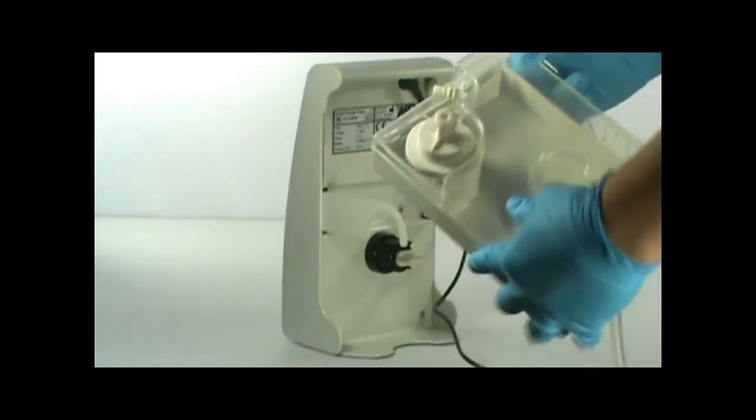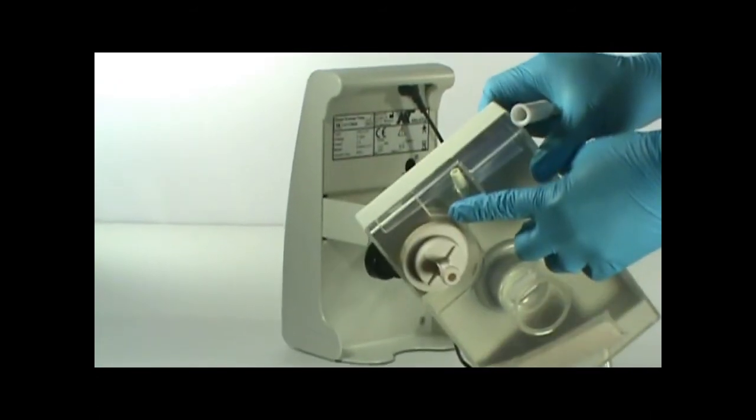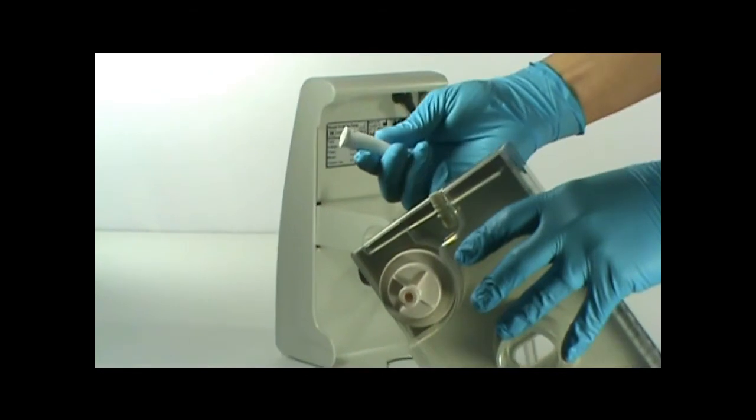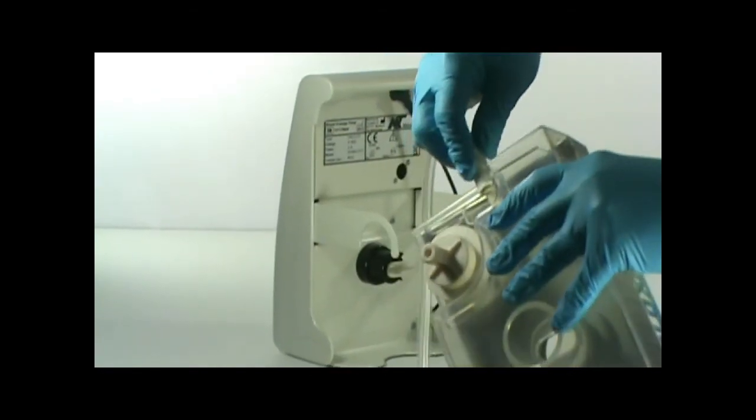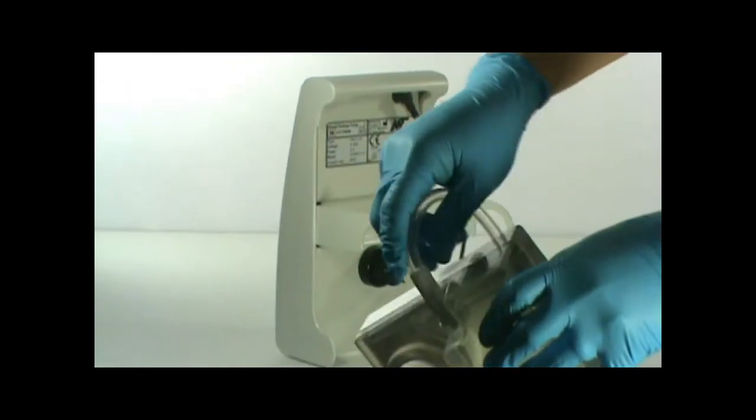Next, connect your canister tubing to the canister. Make sure the canister tubing is properly secured.